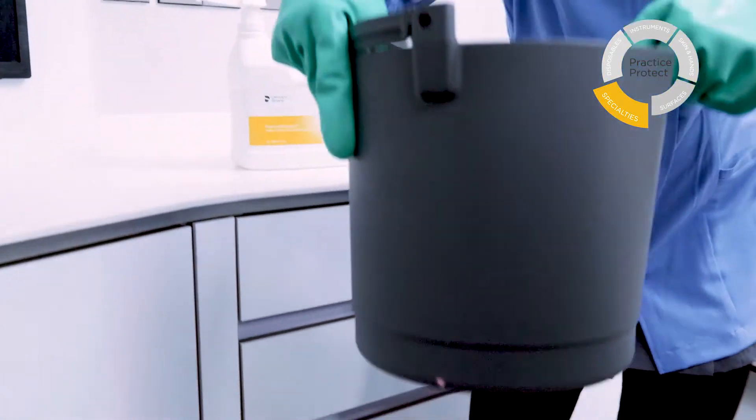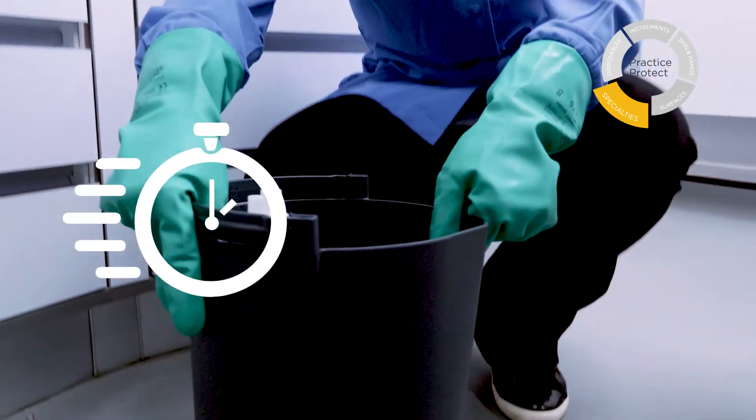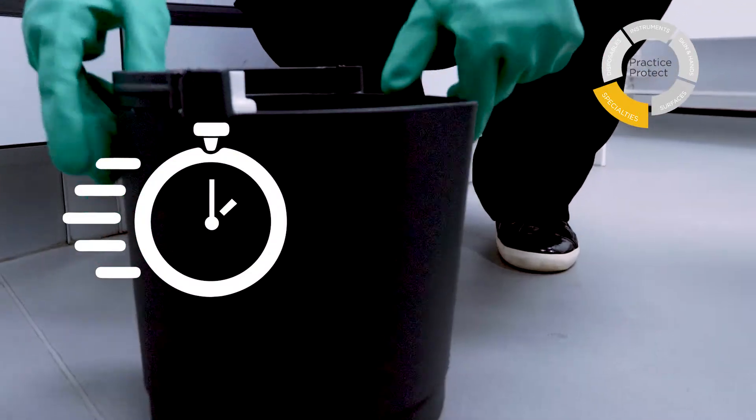When combined with the dispenser, an air-water mixture is generated that cleans evacuation lines better than leading competitors.